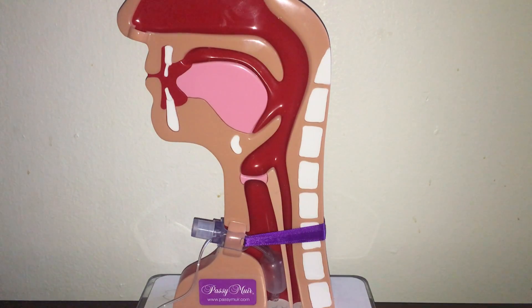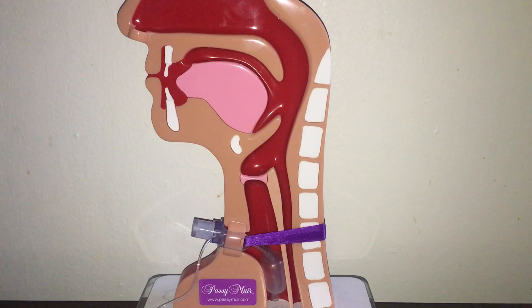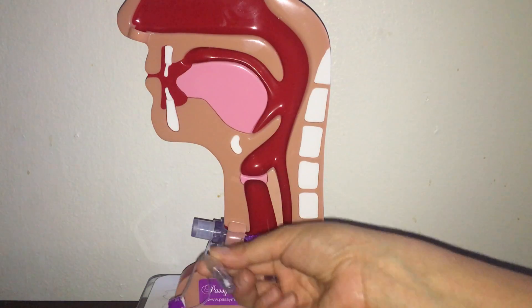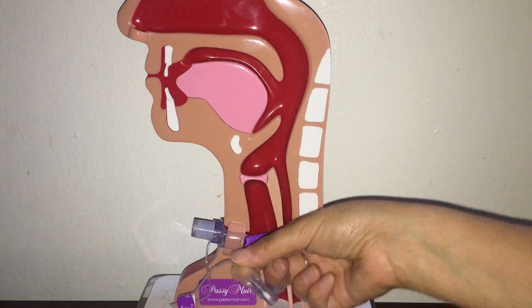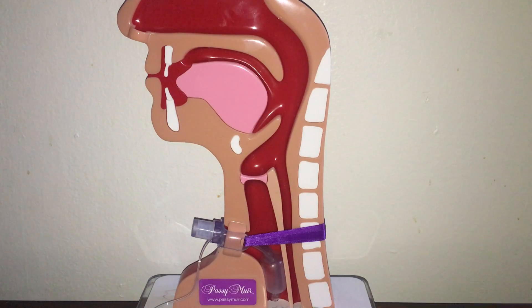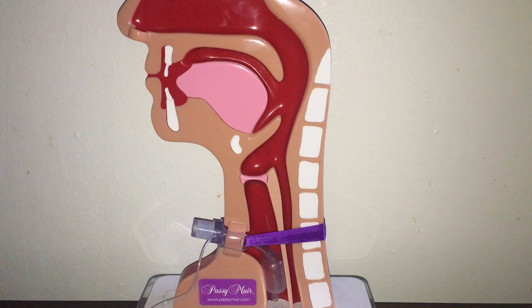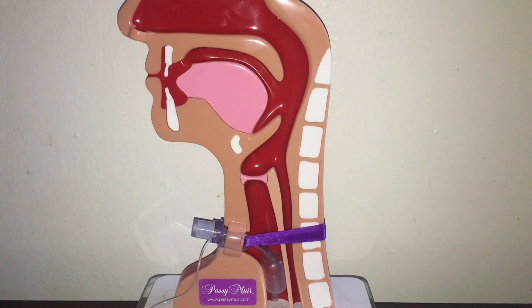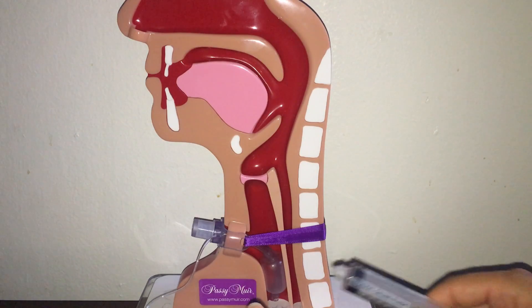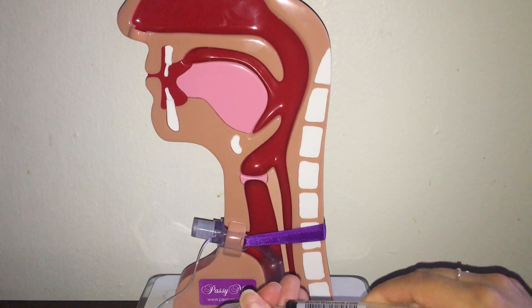When the pilot balloon is inflated, this indicates that the cuff is inflated. When the pilot balloon is deflated, this indicates that the cuff of the tracheostomy tube is also deflated.